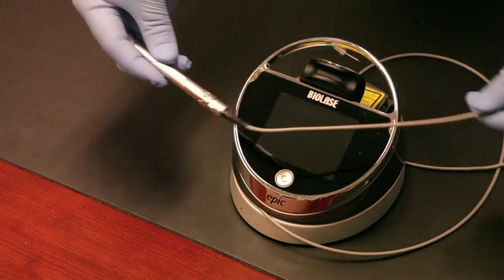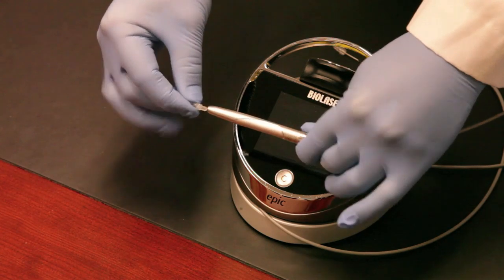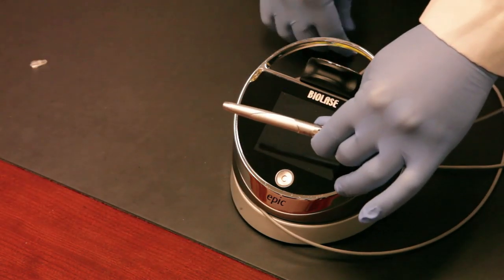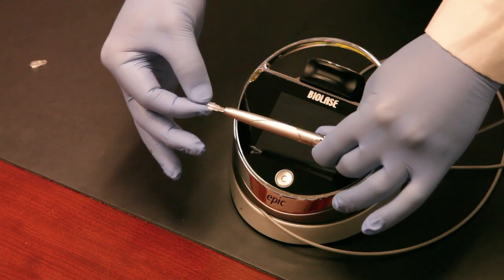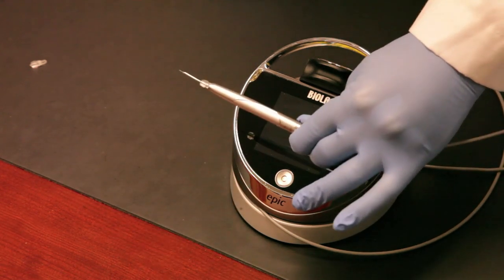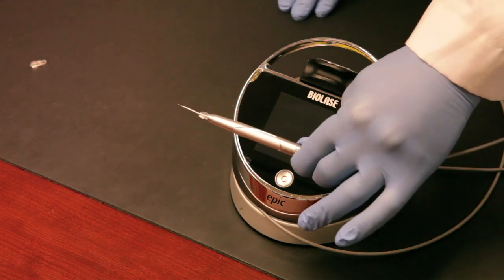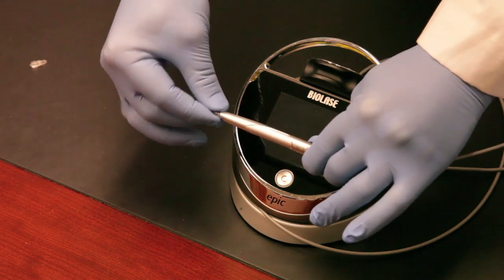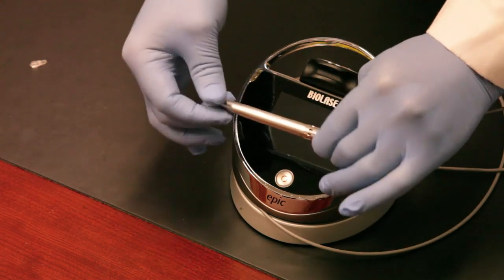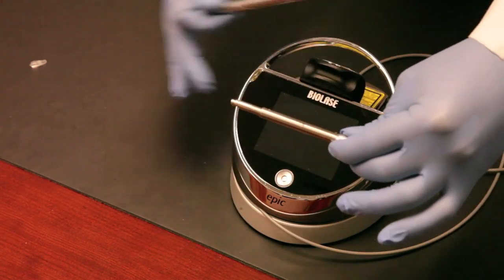We've designed a really convenient system. Remove the plug from the end of the handpiece, take the disposable tip, apply a little pressure, turn it clockwise, and the tip is installed and ready for use — it's that simple. When you're done, unscrew it and throw it in the sharps container. The handpiece goes into the autoclave, you wipe down the laser, take the removable plastic cover off, and that's your teardown.